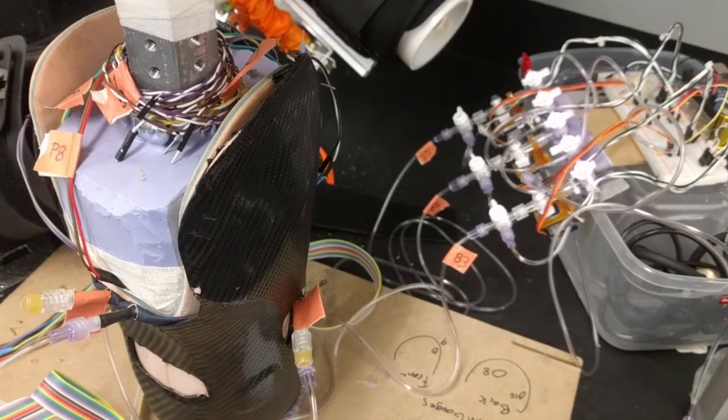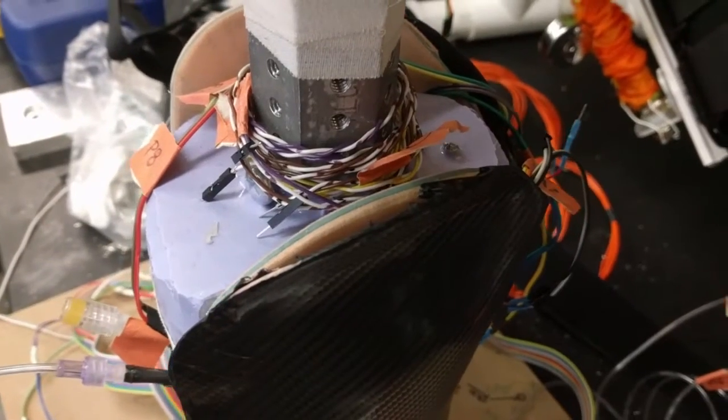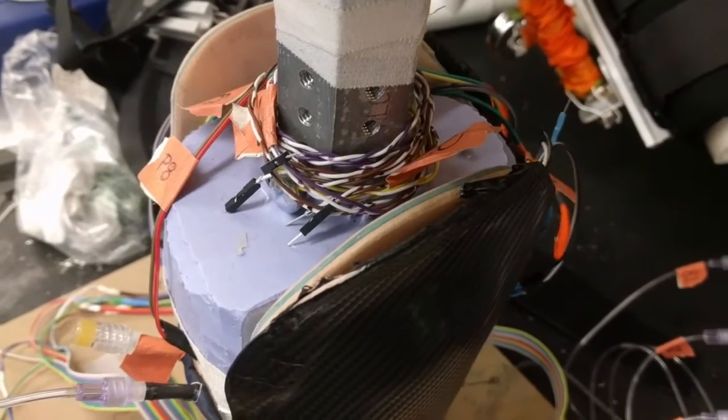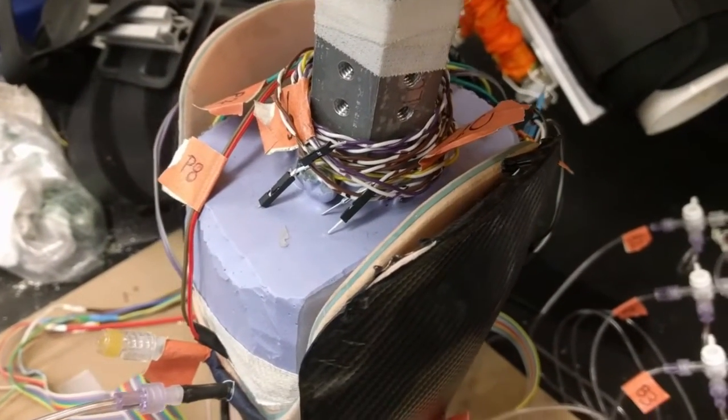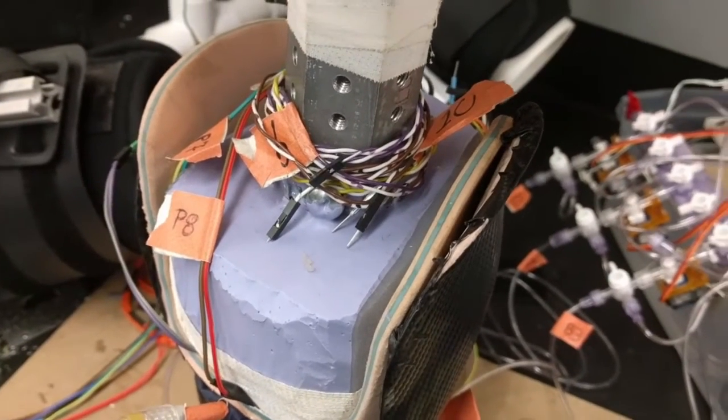Prosthetic sockets and brace interfaces are critical for users' comfort. This in-house built dynamic below-knee smart socket measures pressure field at the interface and appropriately adjusts network of fluid bladders such that the most desired pressure field is preserved even at less than part of second time scales.